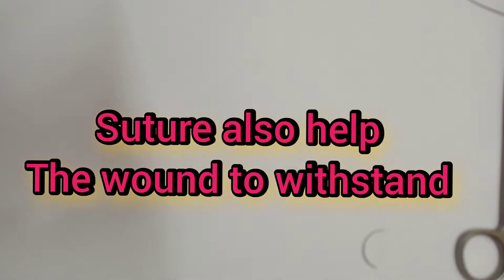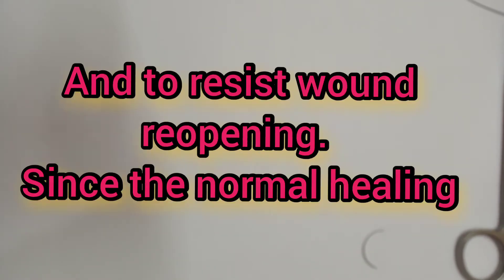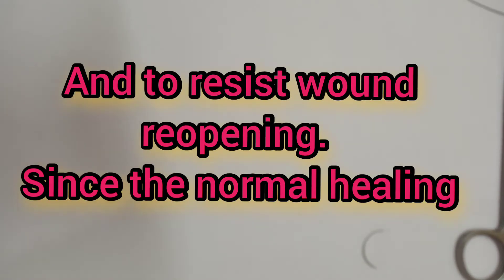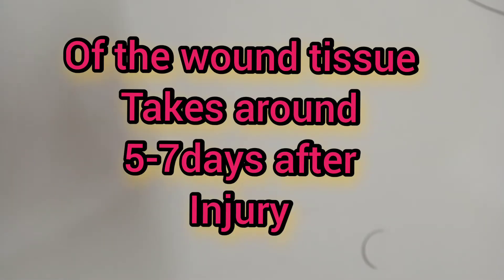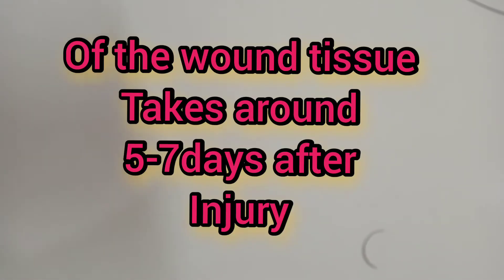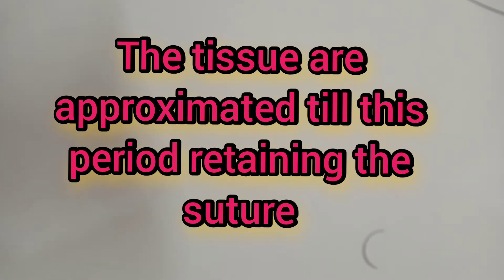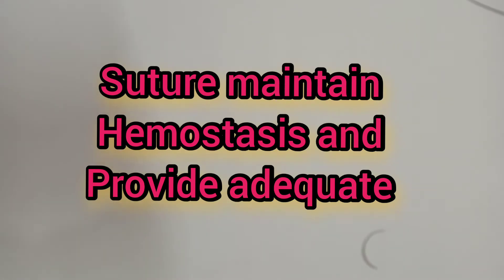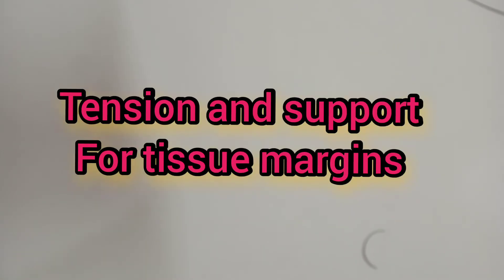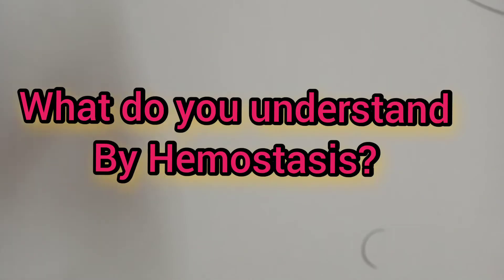Sutures also help the wound to withstand normal functional stress and to resist wound reopening. Since the normal healing of wound tissue takes around five to seven days after injury, the tissues are approximated until this period by retaining the suture. Sutures maintain hemostasis and provide adequate tension and support for the tissue margins.